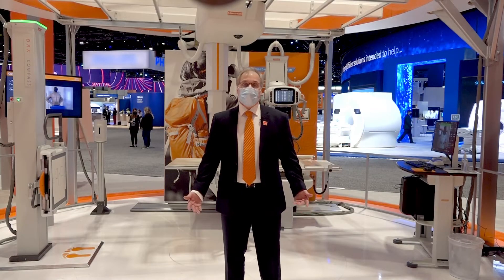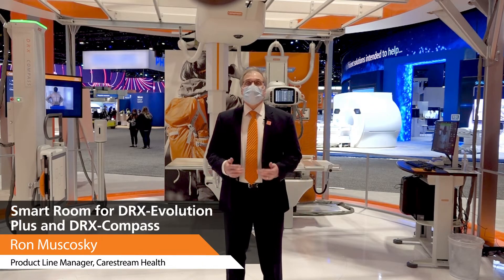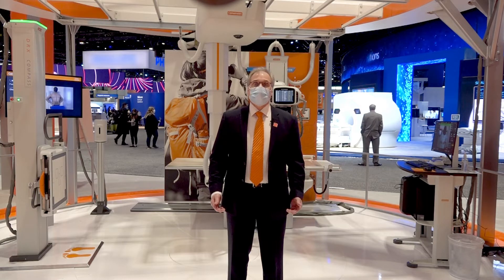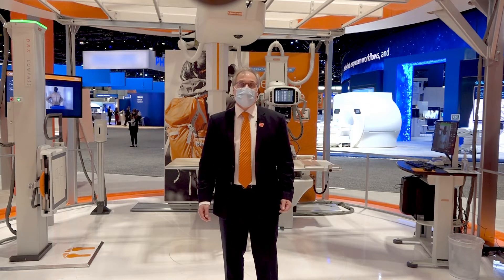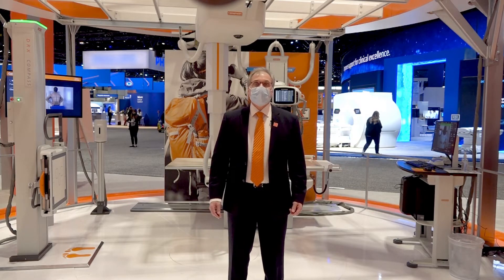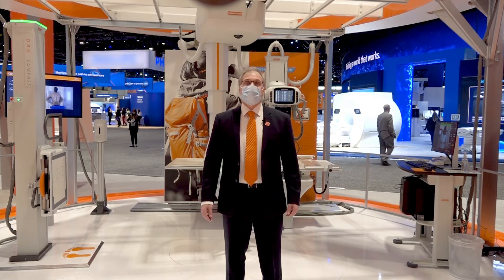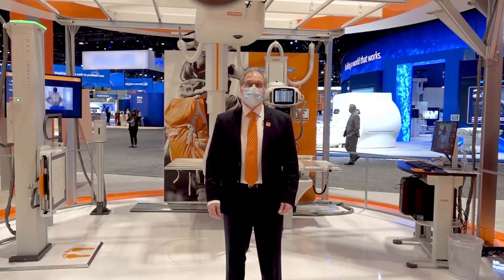Hello, I'll talk about SmartRoom. SmartRoom is available on our DRX Evolution Plus and DRX Compass products and uses artificial intelligence to help a facility improve productivity, consistent imaging, and ultimately patient care. We do this by helping to automate manual tasks and assist a radiographer with intelligent and useful information that helps them spend less time manipulating the equipment and more time on what is most important — the patient.